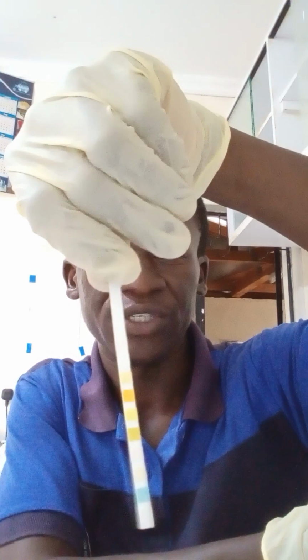So we also have this one here. For those who can see, you can see that we have it here. This one has 10 components, and just to see these components shortly, I would like to give us the list of components that can normally be tested using the urine strips, or the dipstick method, as most of us know it. So one, we can determine the pH.